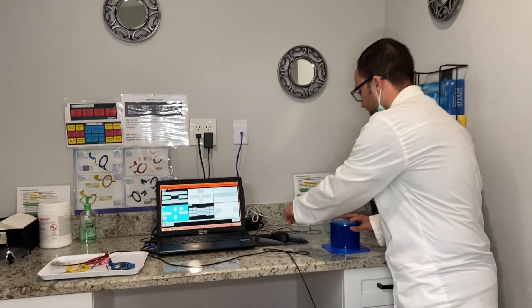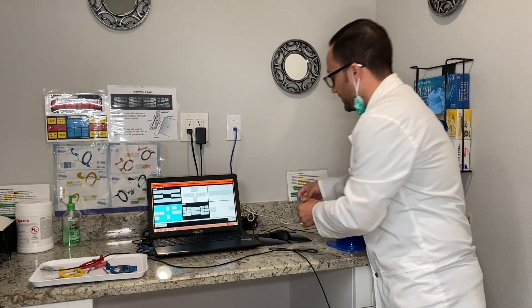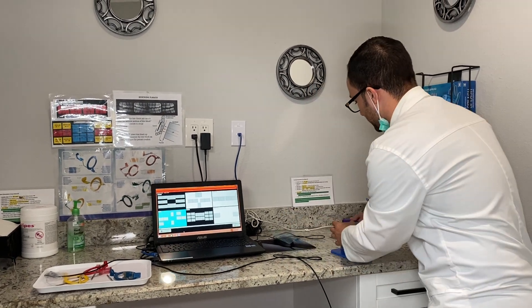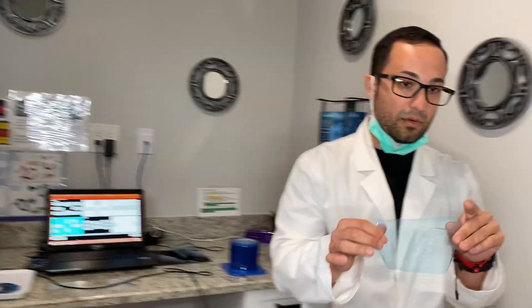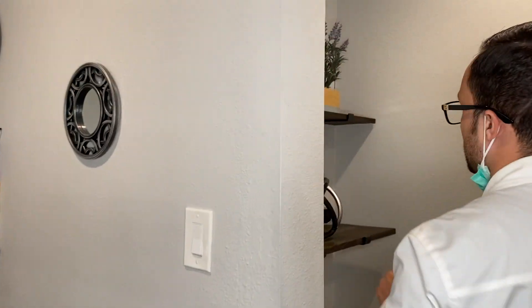I'm going to set up all my barriers first. Here we have our barrier rolls. I'm going to put one on the mouse so that way we can click in and out of the screens while we're working. I'm going to put one more over our button, and that is outside of the room.